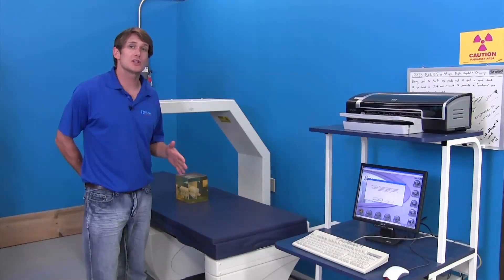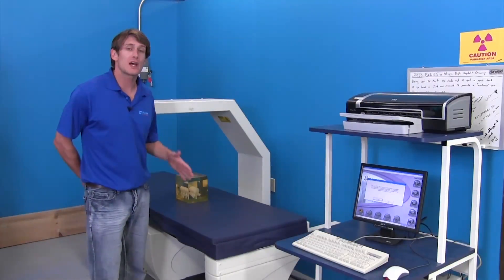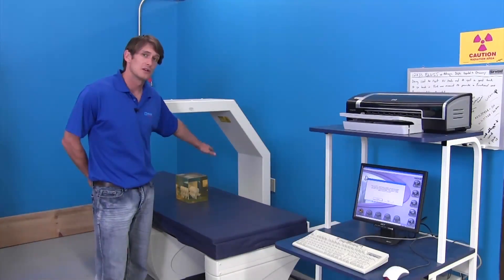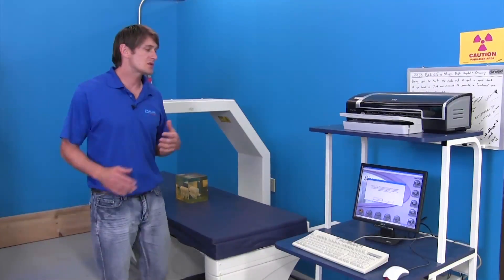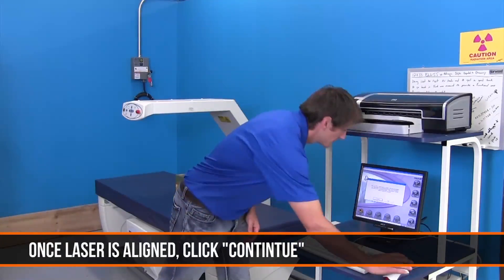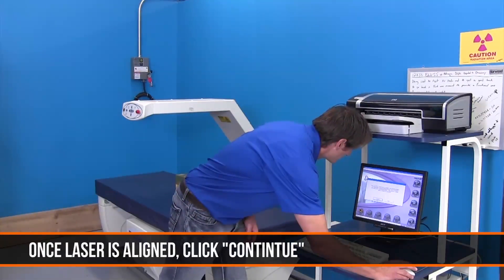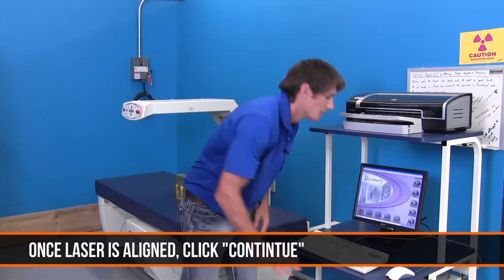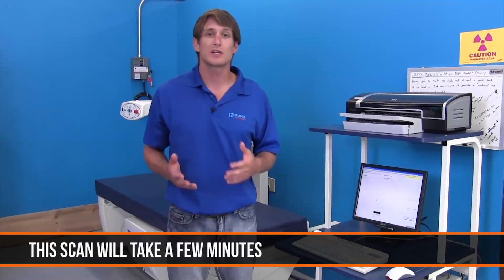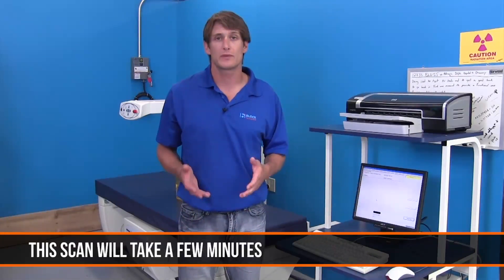After positioning your QC Phantom with your localizing laser, move back to the software and click continue to start the scan, keeping in mind that this scan will take a few minutes to run through.